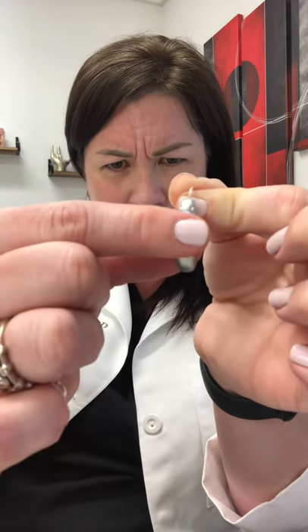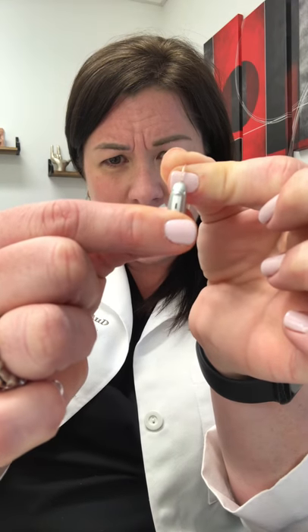To turn it back on when you're ready to use it again, press it for a couple seconds and you will see the light turn and flash green. Now remember, when you take the hearing aid out of the charger it automatically turns on, and when you put it in the charger it automatically turns off.